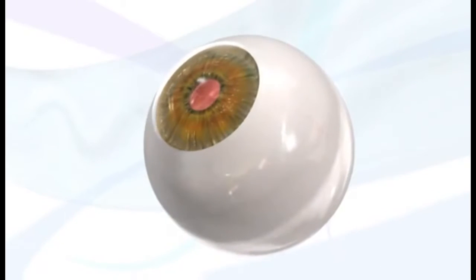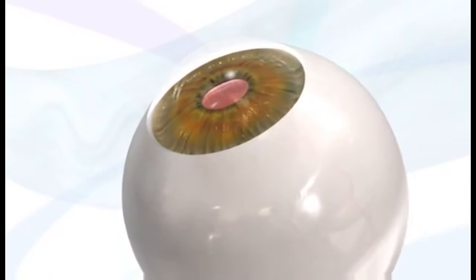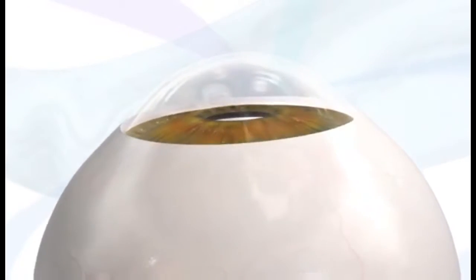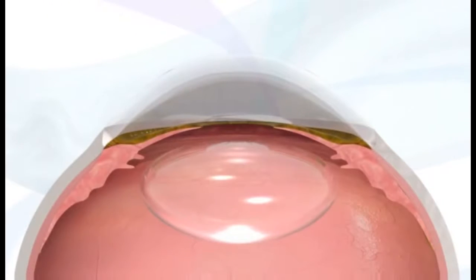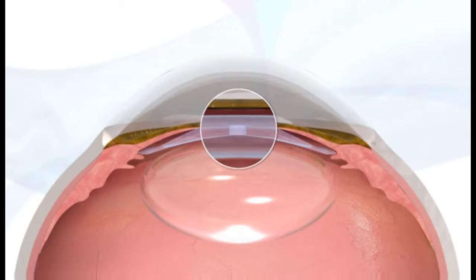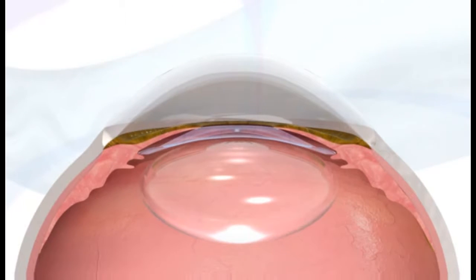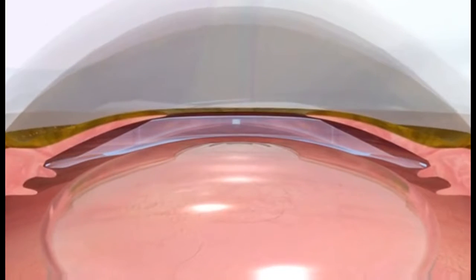Introducing the new Visian ICL V4C with Centraflow Technology. Centraflow Technology features the KS Aqua port, positioned at the center of the optic, which facilitates the flow of aqueous humor through the eye without the need to create PIs.